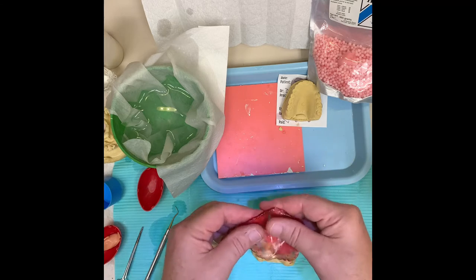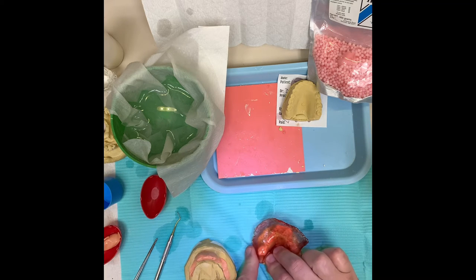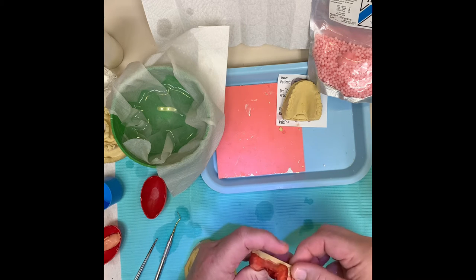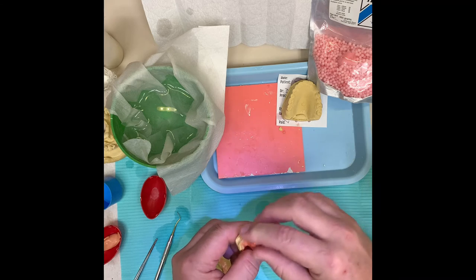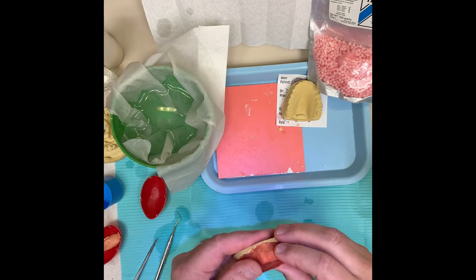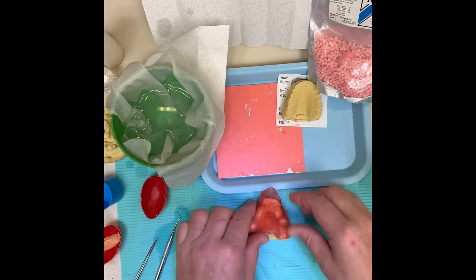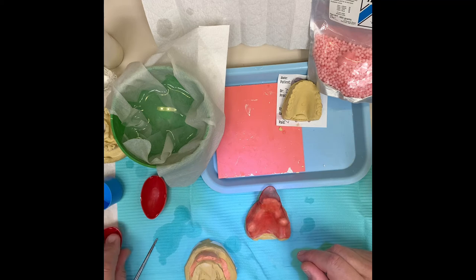The idea is to get a relatively even layer of material. Start in one place and kind of push it around the teeth, trying to keep it inside the mouth so to speak. Do the front last - any extra material you're going to use to make your handle with. Push anything extra up toward the front to make a handle. If you need to rush, you can lean it on something; if you just run away, it's going to droop like a limp biscuit.